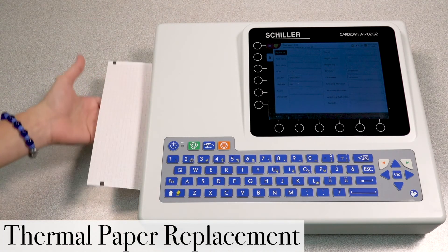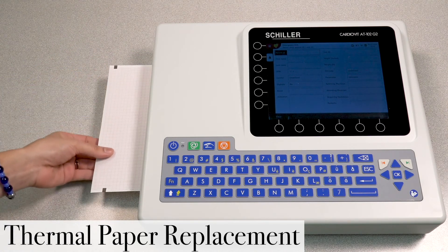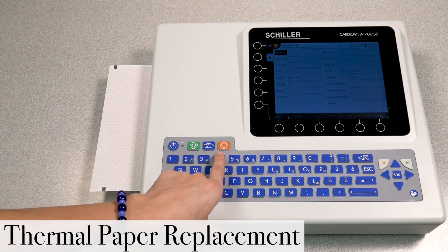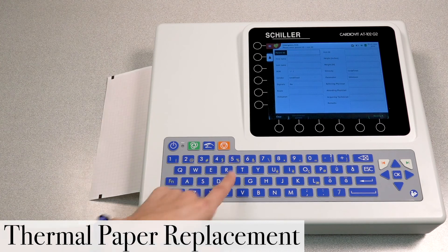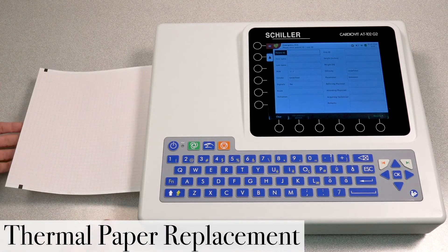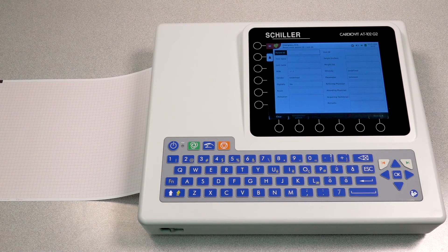And of course you have this little bit of sheet hanging out. So what you'll want to do is on your keyboard, you'll press this red button here, one time. And that would actually roll out your paper until the next perforation.